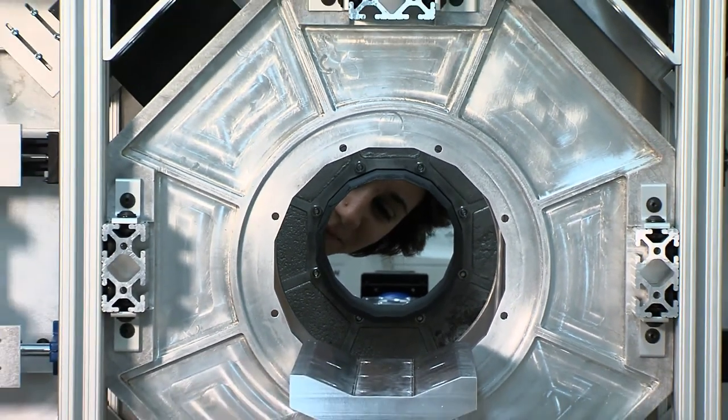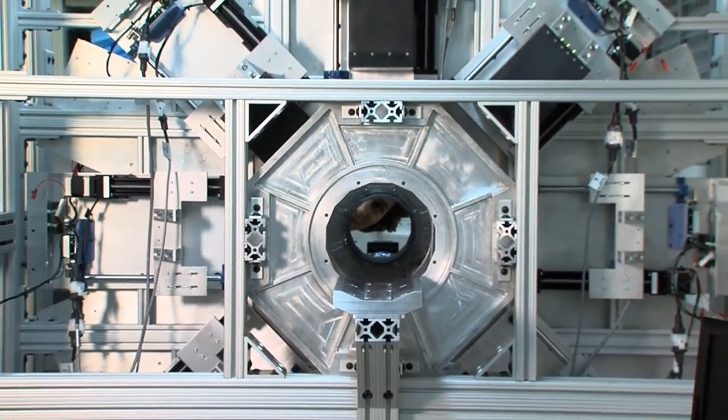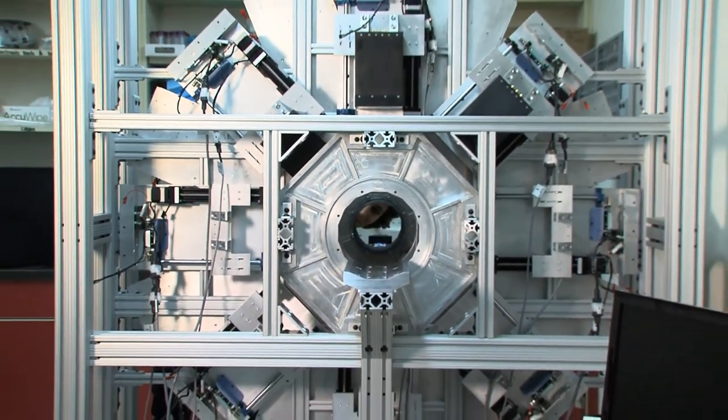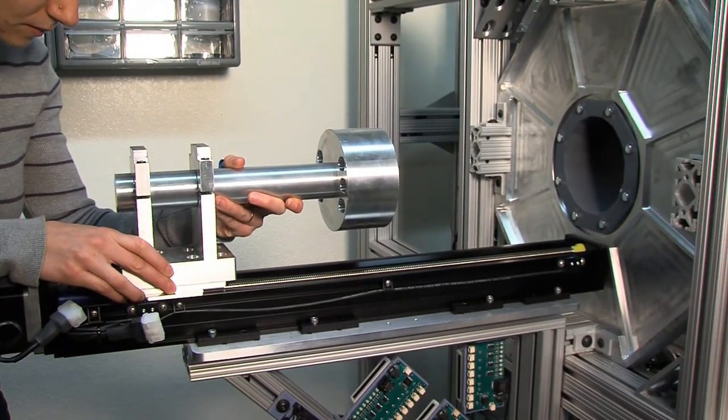Finally, this is our adaptive SPECT system, which uses 16 of our modular cameras, each mounted on an independent translation stage. An adjustable collimator slides in and out to select the pinhole or pinholes for each of the cameras.